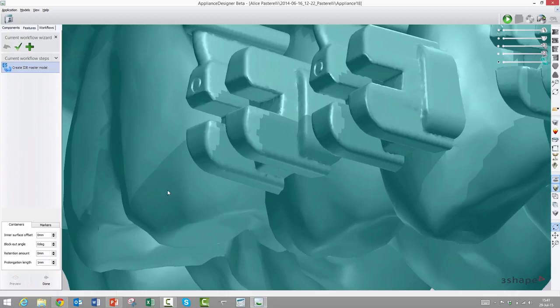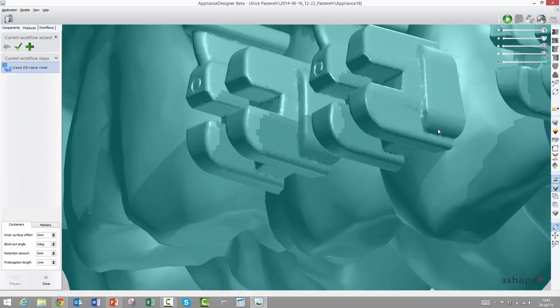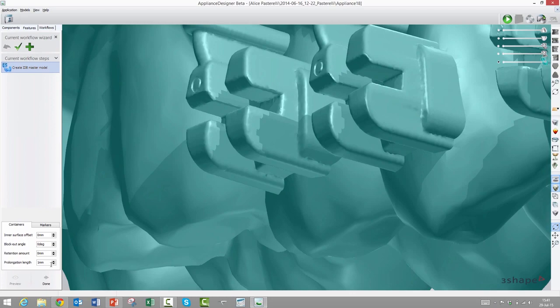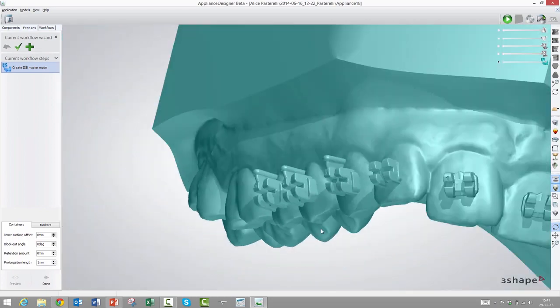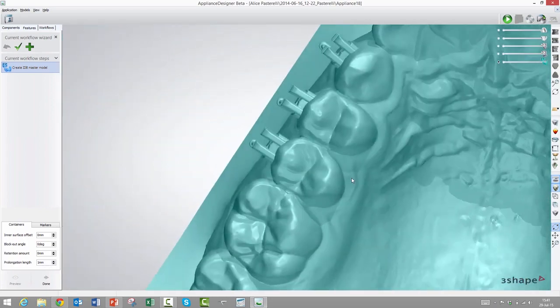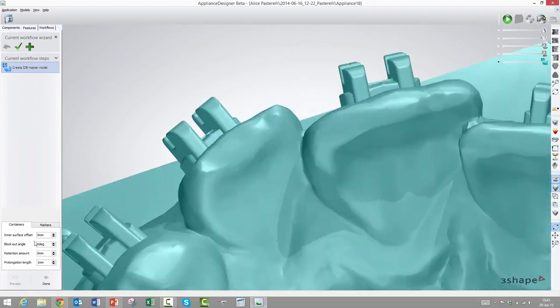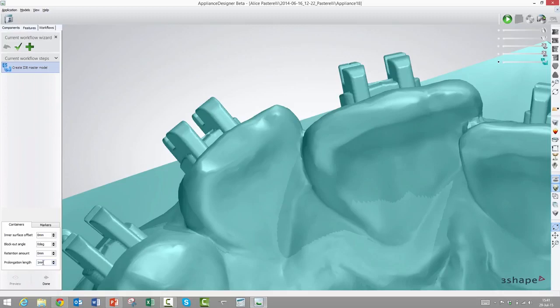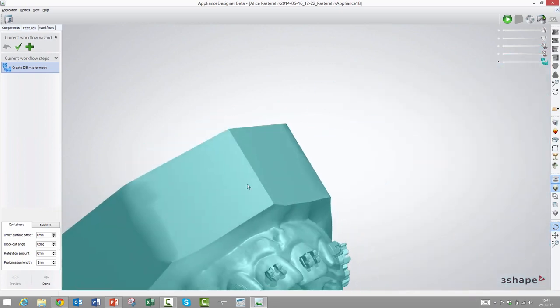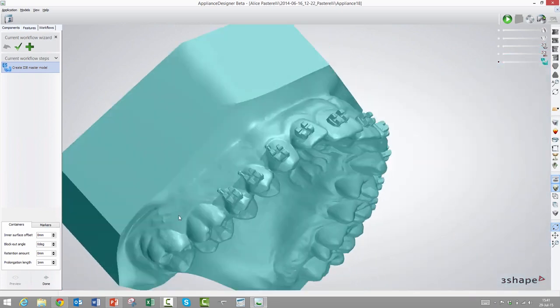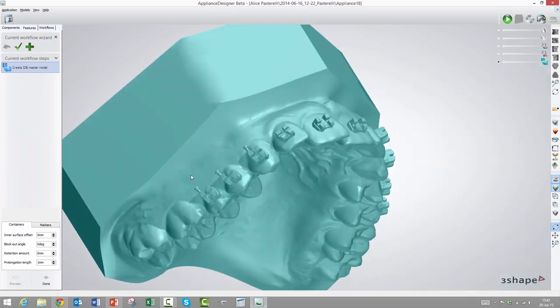Why would you want to do that? When you then vacuum compress your tray on top of this and you have a little retention, you will get this clicking effect when you click in the bracket into the finished transfer tray. So you get a sensation and then now it's fully seated, because you know if you don't get the click, then it's not seated all the way to the bottom. That makes it very secure for both the lab and clinician to know that it's seated properly. The last parameter is called prolongation length, and what that does is it takes care of any cavities that are under the bracket base and the tooth surface.